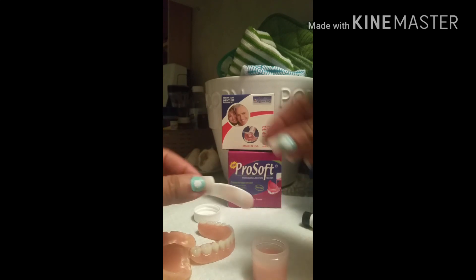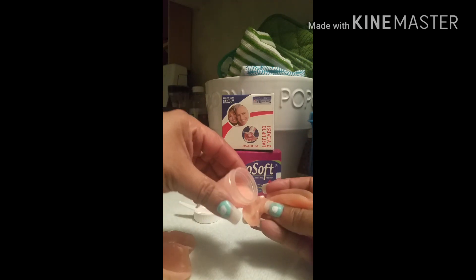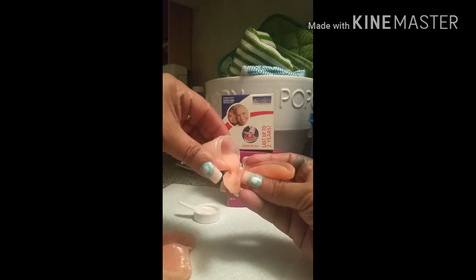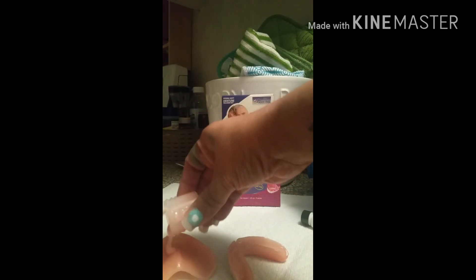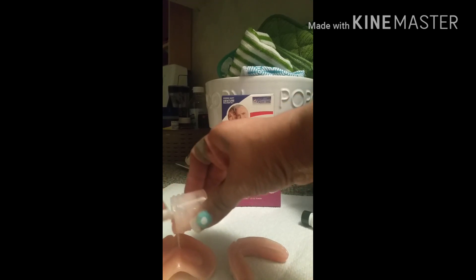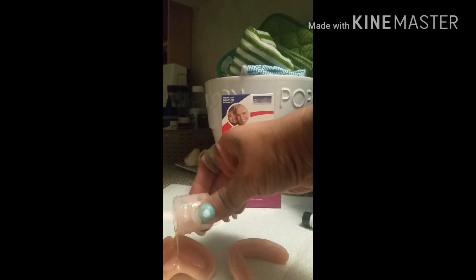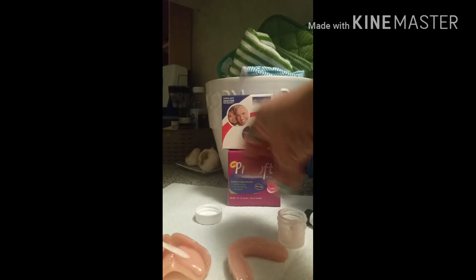I'm going to pour into my lower first — just a little bit, very careful. Then I'll pour the rest in here — actually that's going to be perfect. You just take your spoon like you're baking a cake, get it all out with a spatula, mix it into the base of your denture, and then pop it in your mouth after you rinse your mouth out with water.